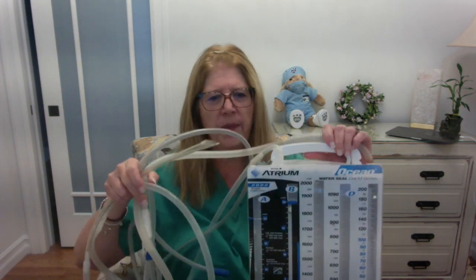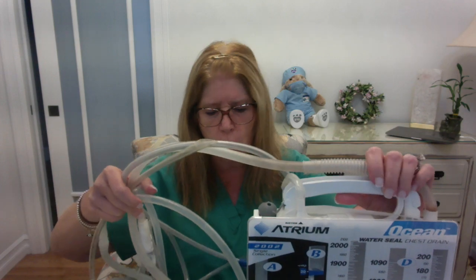chest drainage unit. So I have a chest drainage unit here, and I want to show it to you. And I'm hoping that you have already listened to the pre-voice thread for these videos for the respiratory lab, so that you know, because I'm not going to go over every single detail related to this, but I want to kind of show you what these chest drainage units look like.